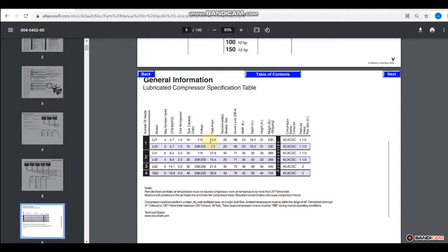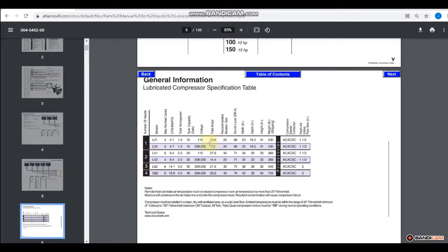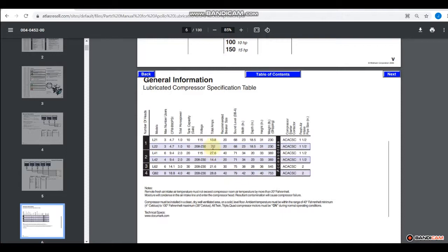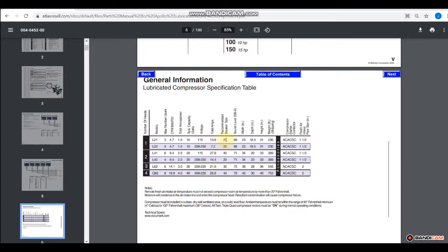Now total amps is an important factor because when a compressor's running, it is drawing amperage, which is current. And you'll notice here that the L21, which is 115 volts, is running about twice as much amps as a 208 version, which is the L22. And that's the reason you'd actually want to run a higher voltage compressor as opposed to a lower voltage compressor, because your amperage is going to be a lot lower because 208 or 230 is a lot more efficient. So when you're planning, you want to make sure that you have proper circuit protection for that proper amperage.